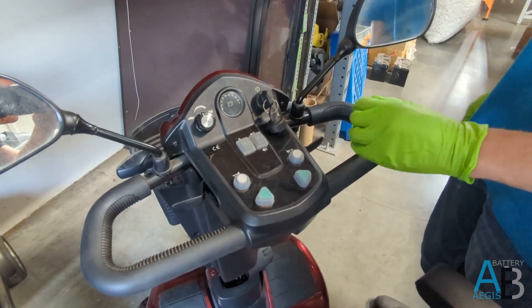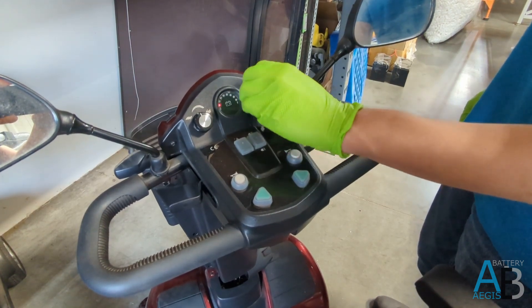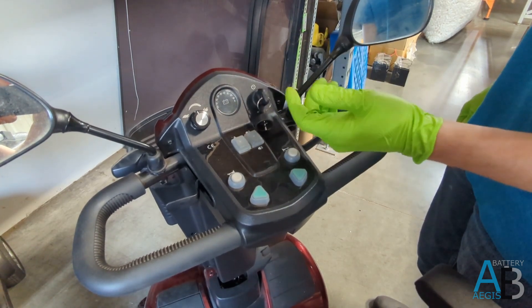Here at Aegis Battery, we recommend you please be careful — even if the charge shows red on the meter, or appears to be completely dead, there might still be some spark or charge within inside the mechanism.